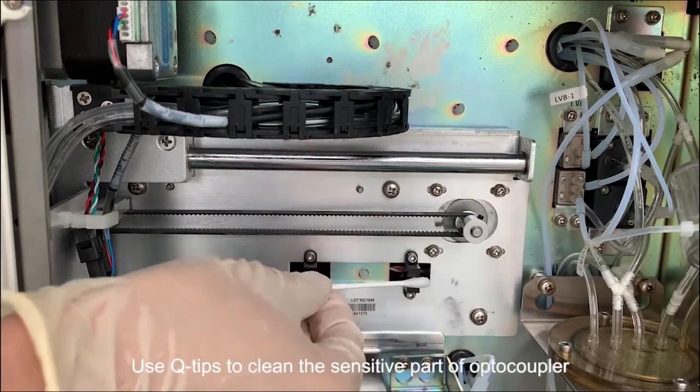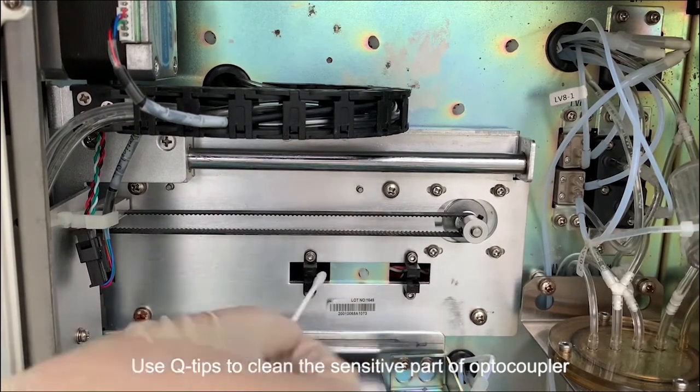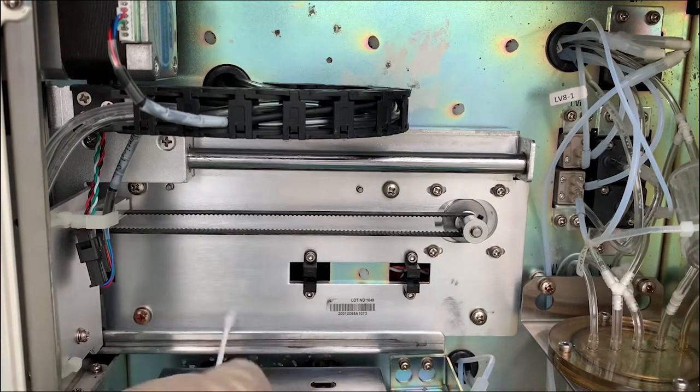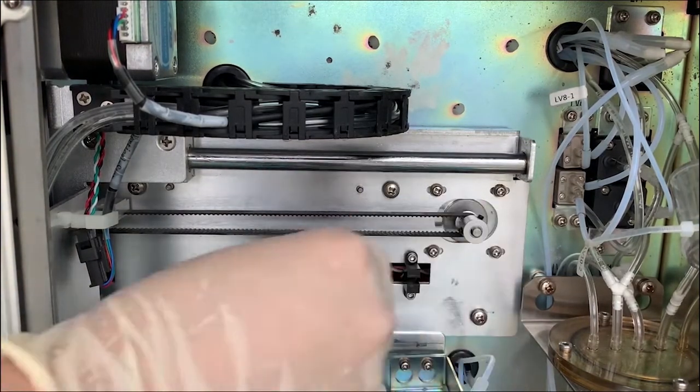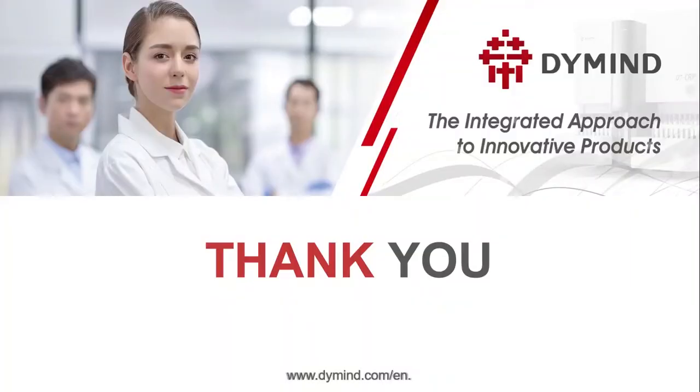Use q-tips to clean the sensitive part of optocoupler with alcohol.